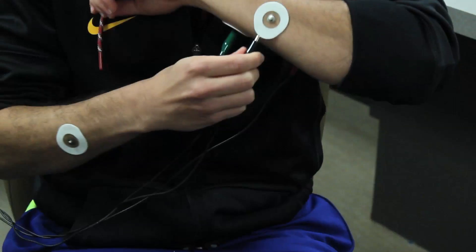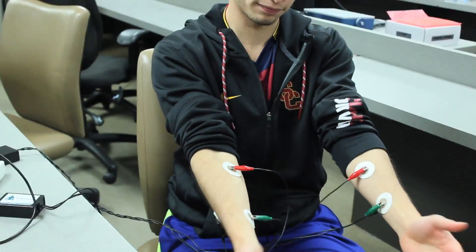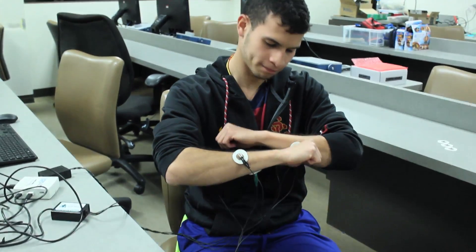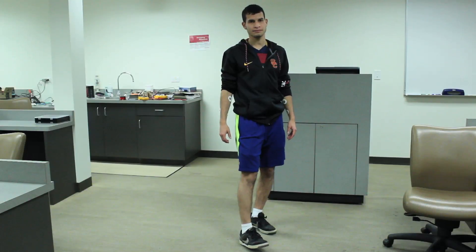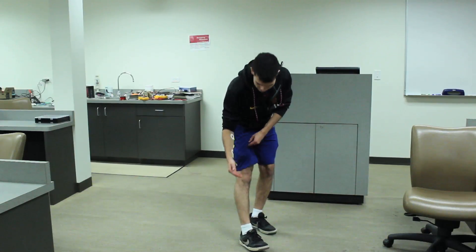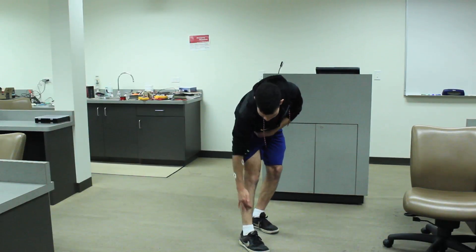For this demonstration we will be using the arms instead of leg muscles. For the actual system, you should connect the EMG sensors to the tibialis anterior, which is the front of your calf, and the quadriceps, which is the front of your thigh.